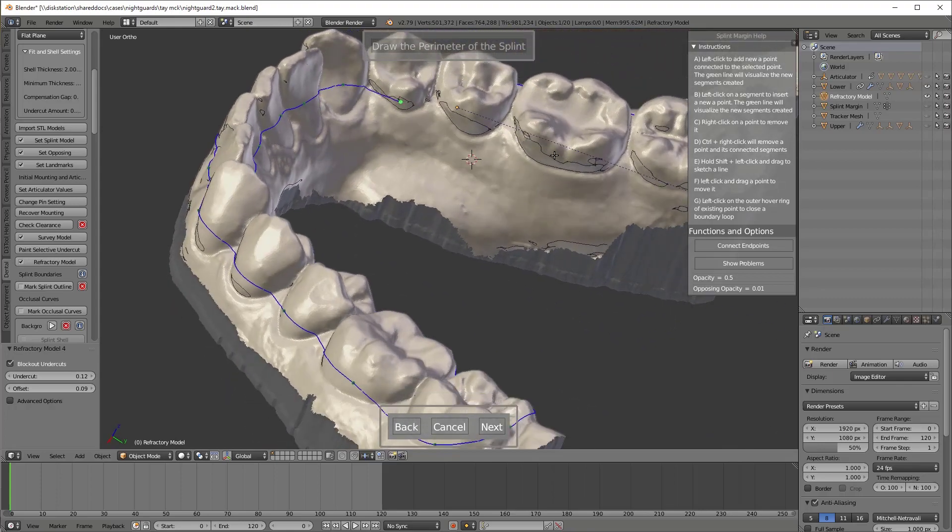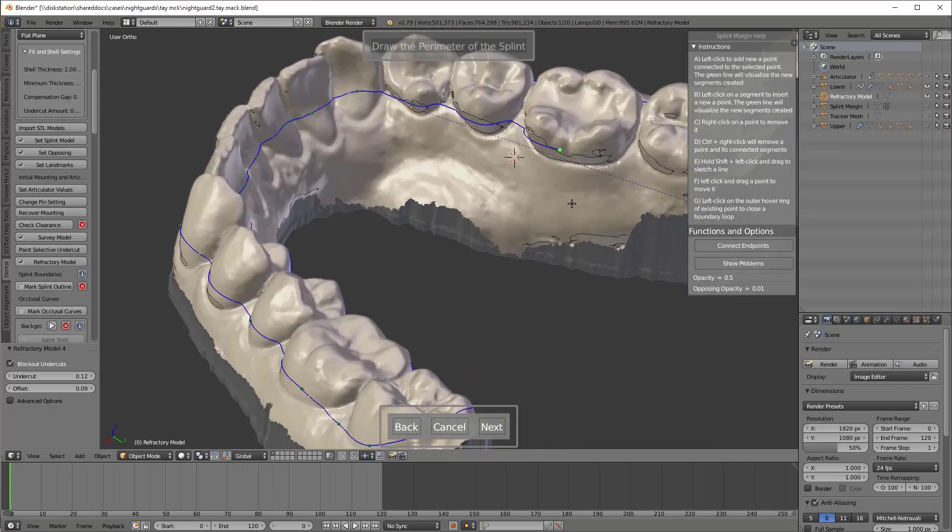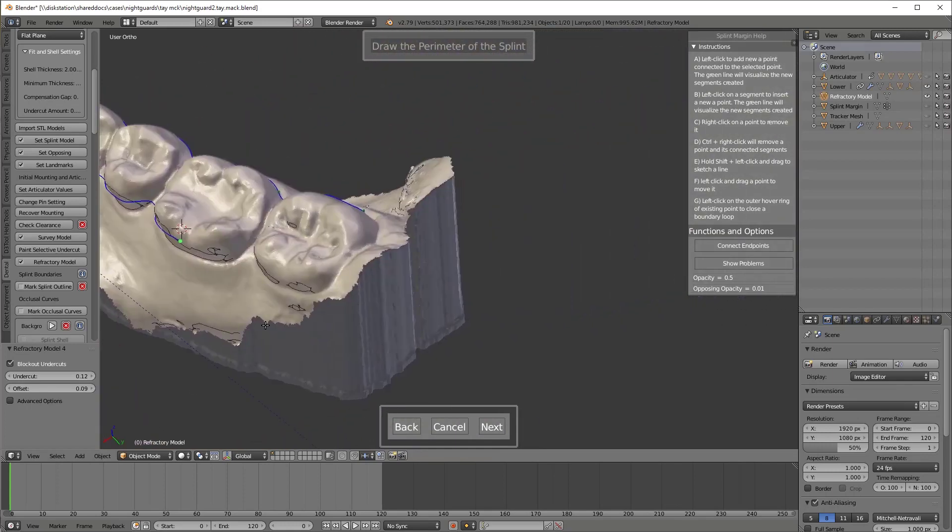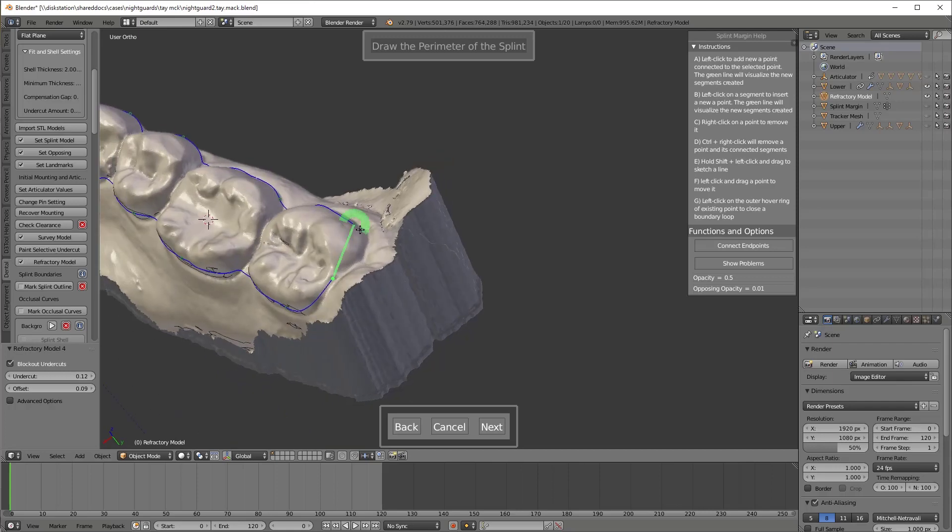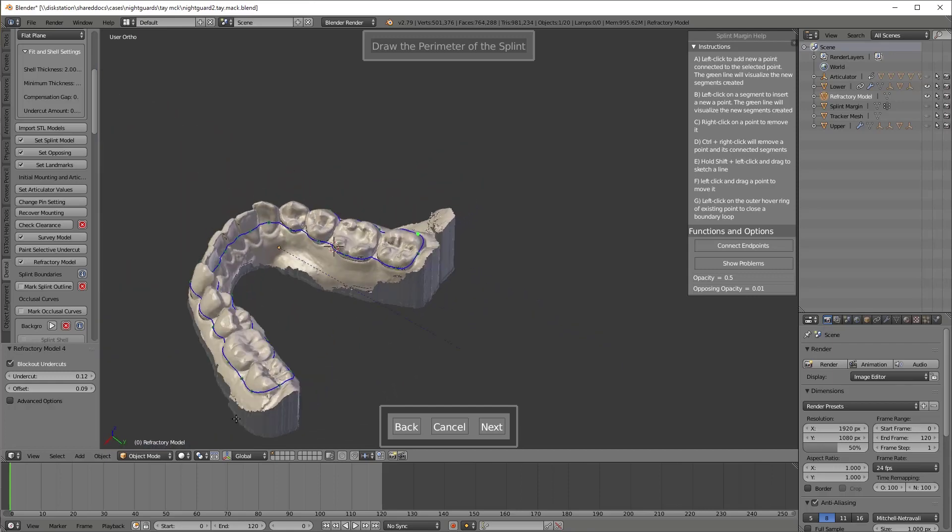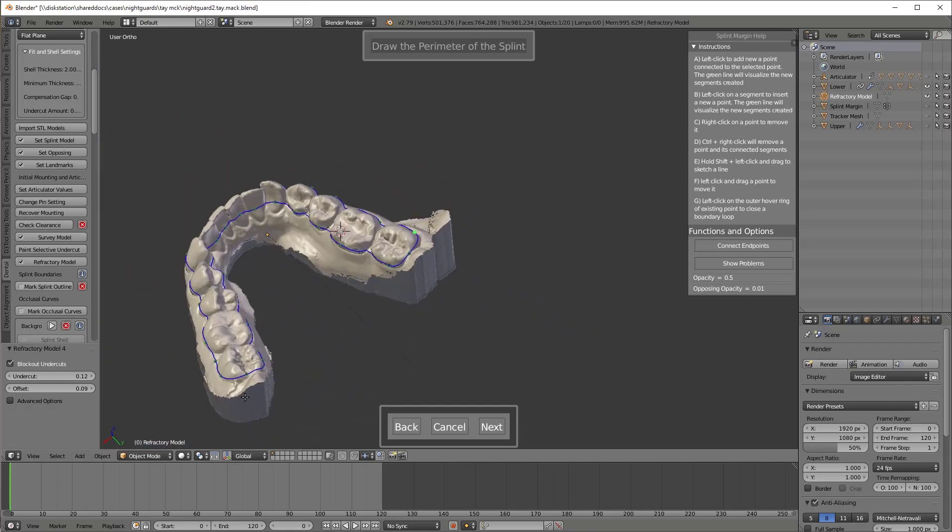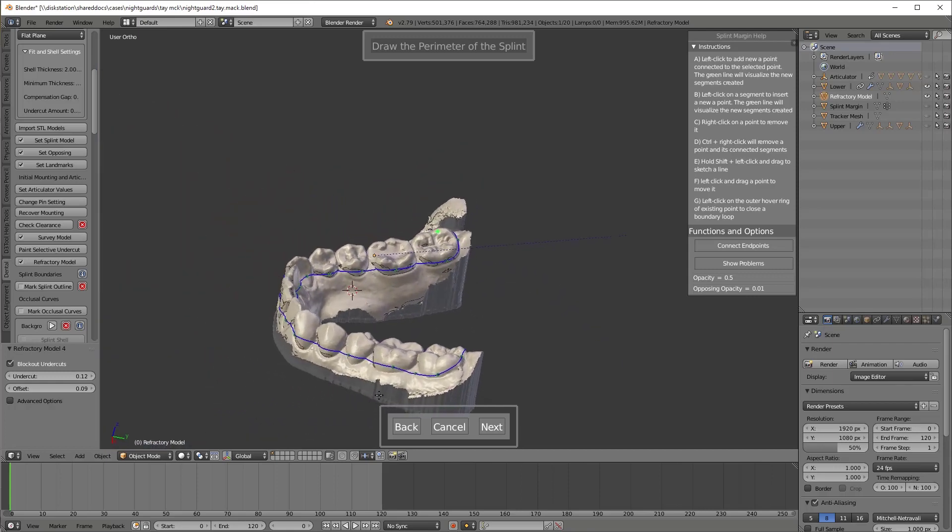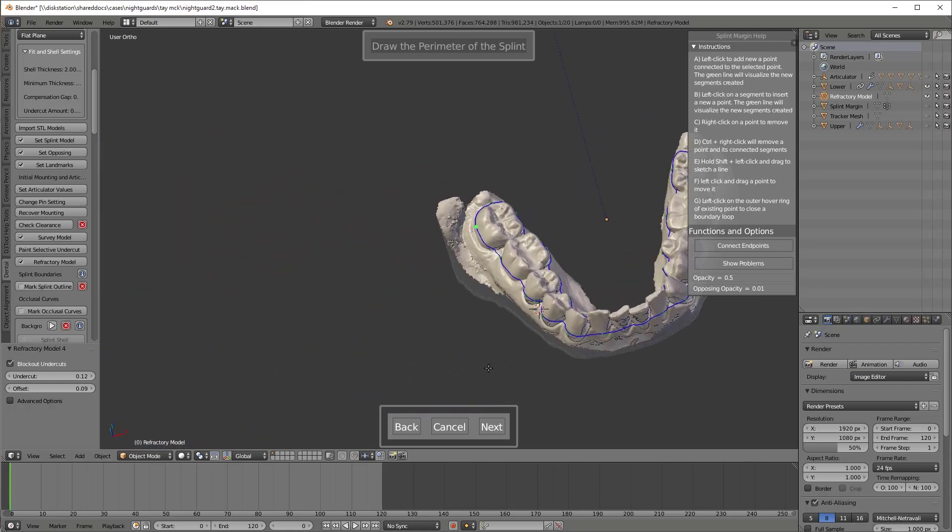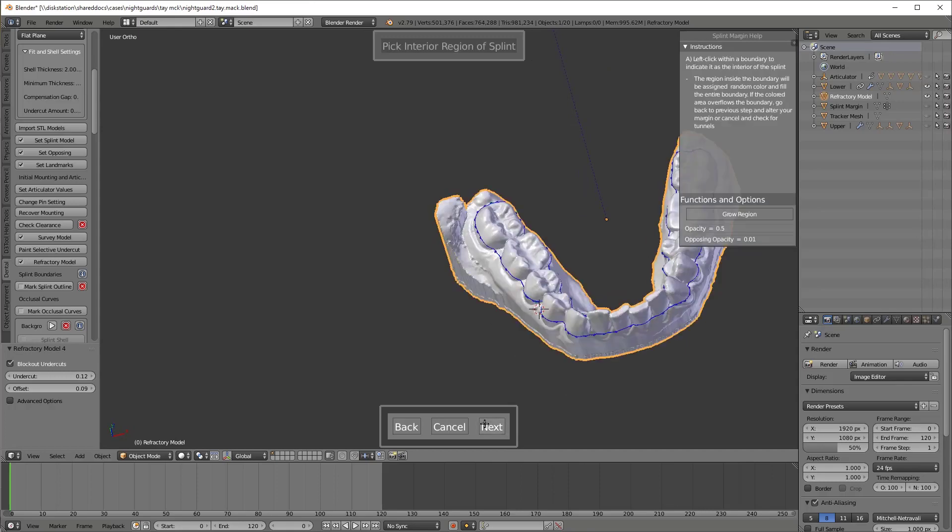So if you get off track you just right click and delete to delete the green point. That's a problem. You see that red show up. It'll actually resolve itself if you just give it a little bit of time off it. Or I'll just wiggle my mouse near there and it'll do as well. Now I've got it all selected. I'm going to hit next. After double checking of course to see I got everything.